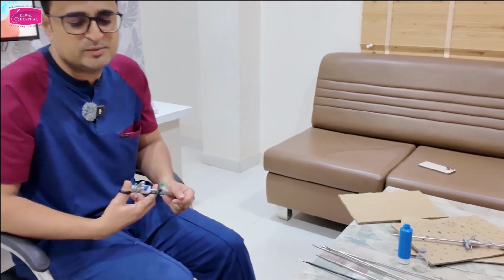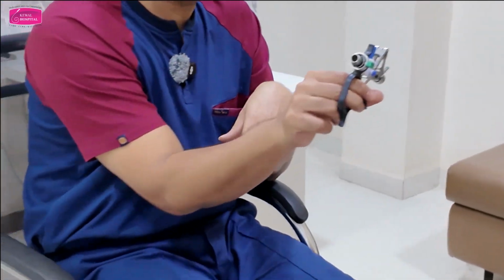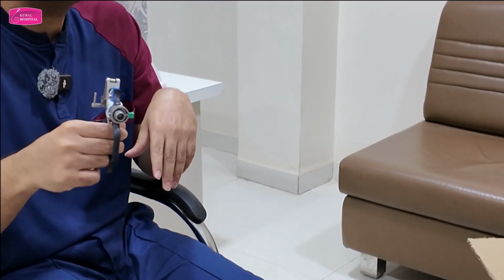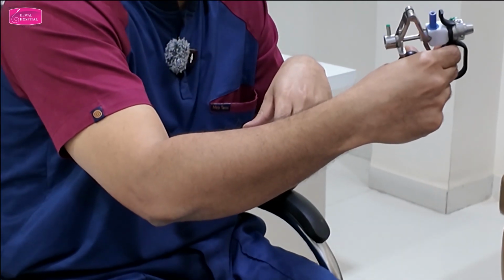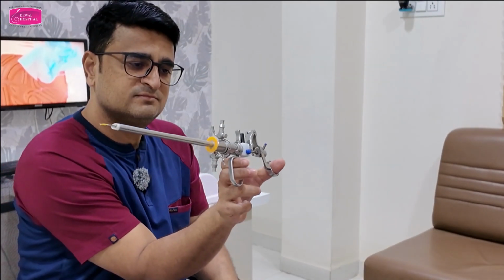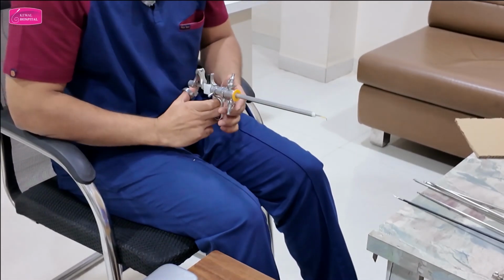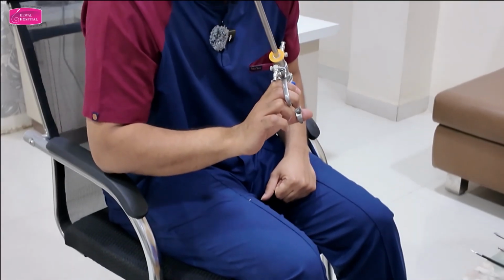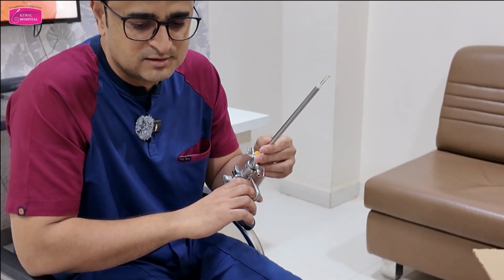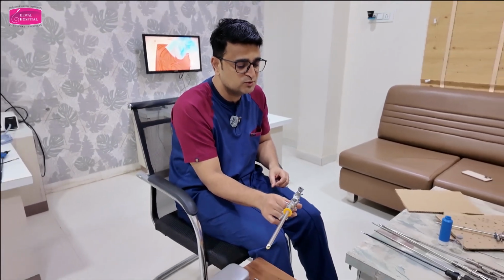Now, the most important part of the resectoscope is the working element. I will tell you how to assemble that also. But you can see here, my thumb is moving. So there are two types of working elements. In one type, the thumb moves. In the second type, the finger moves. Here the fingers are constant. Can you see this? Here, what is moving? Fingers are moving. So this is thumb operated, this is finger operated. Understood? In gynecology, we want thumb operated, not finger operated, because in finger operated, the electrode remains outside. See? In thumb operated, the electrode remains inside. This is the difference between these two resectoscopes.